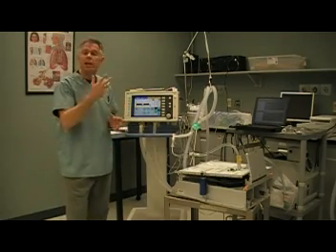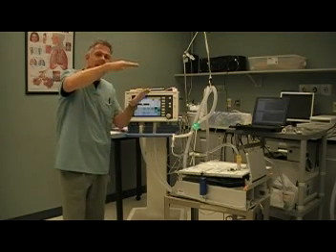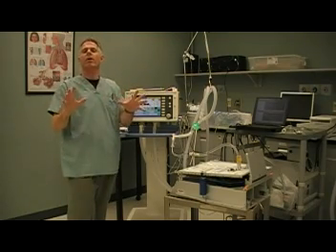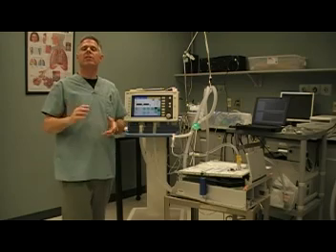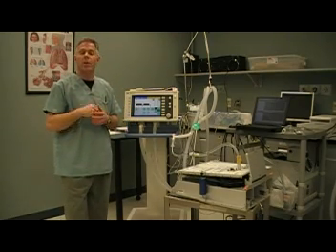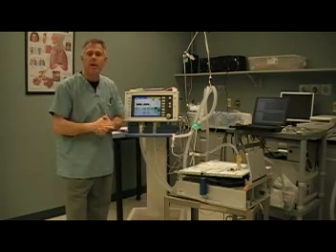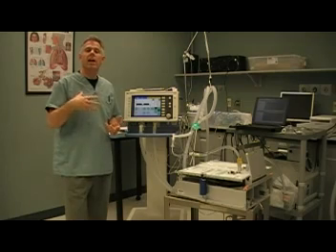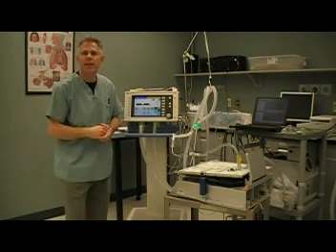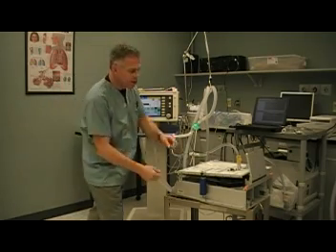The patient can breathe at any time, either during the higher inspiratory pressure or the EPAP expiratory pressure. The patient can breathe at any time during the cycle. The purpose of this mode of ventilation is a lung protective strategy. We're also given very precise control over the mean airway pressure created in the lungs, and that's useful to help control oxygenation of our patient. This is often used on patients with severe lung disease and very low compliance.